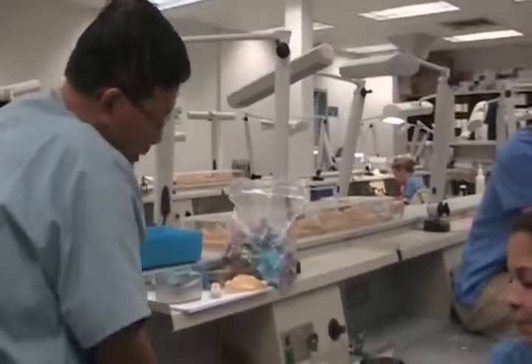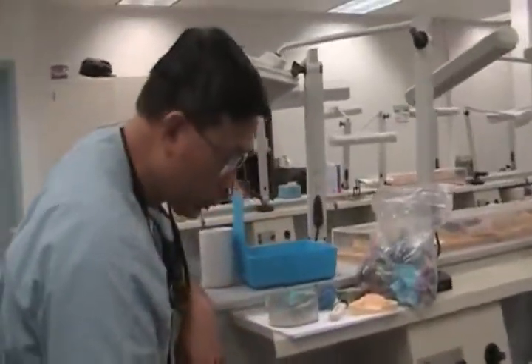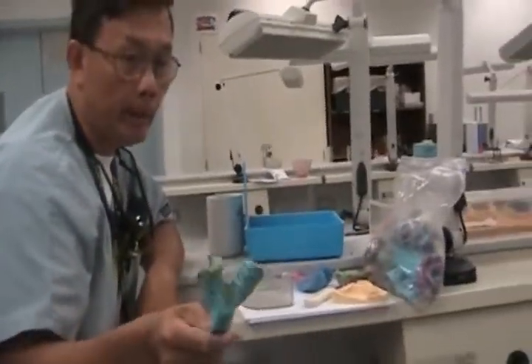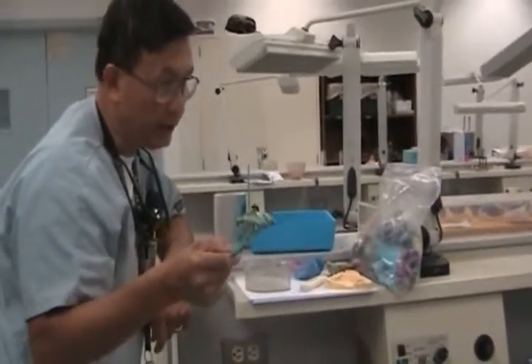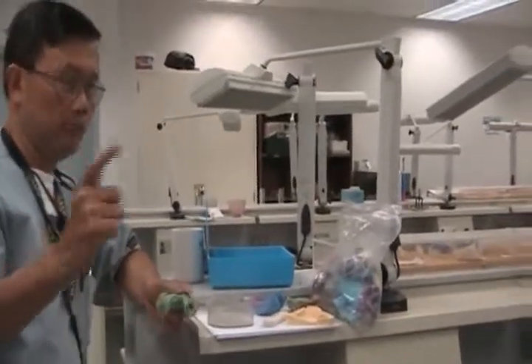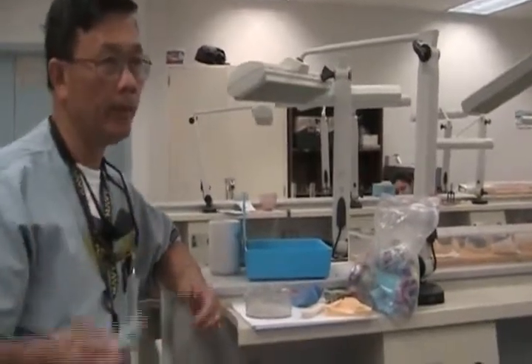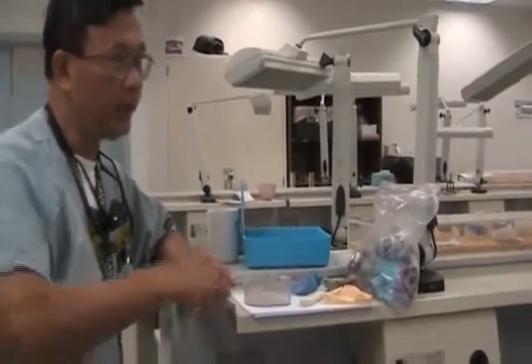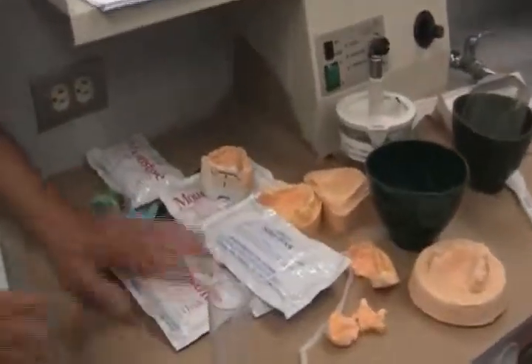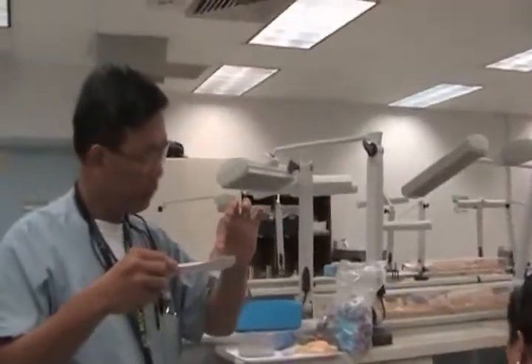Ready for me to demo how I do it? Let's use golden. What would you do coming out of the mouth — you'd disinfect it, wrap it up, put it in a bag, take it to the lab, come in here and pour it. Let me get a spatula — do you have any of the pointed ones?